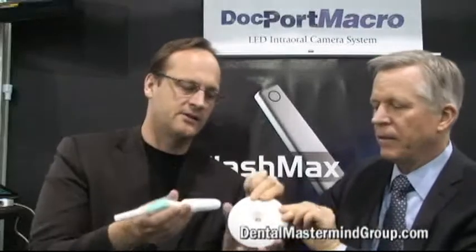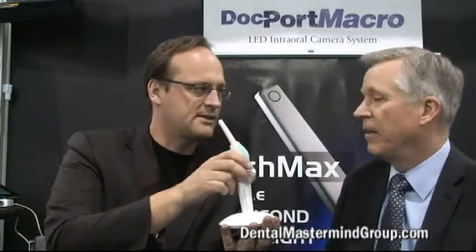Tell us about the unique base for charging. This is a really nice circular charging base. The advantage is you don't get any contact wear because the contacts are never in the same place — every time you place it in, it's slightly different. It's a lithium-ion battery and you should get about 200 cures on a single charge. I have never had a problem with the charge. Every single time I take this light to the mouth, it's ready to go. The charging and power supply system is amazing.